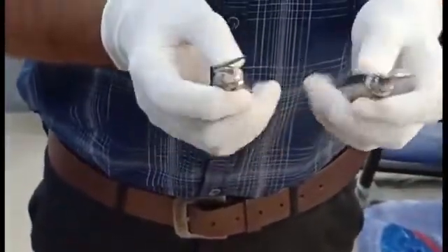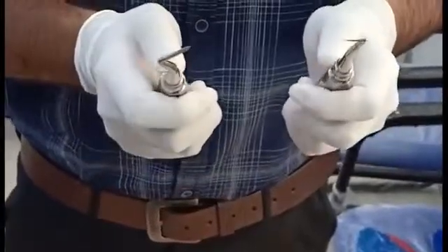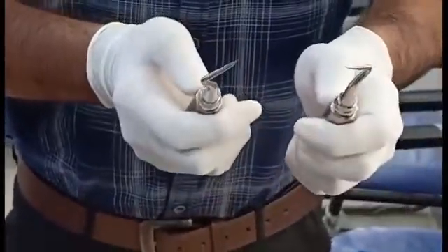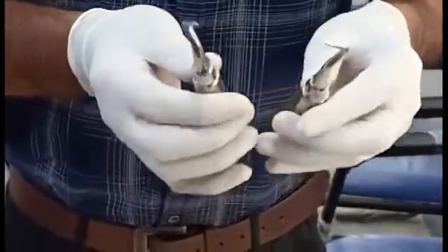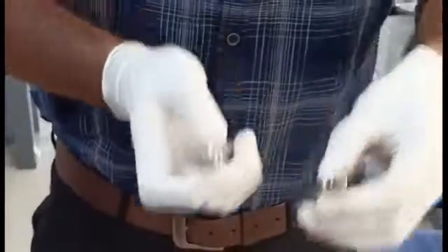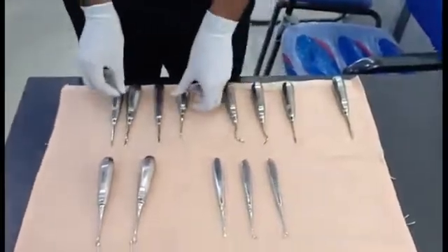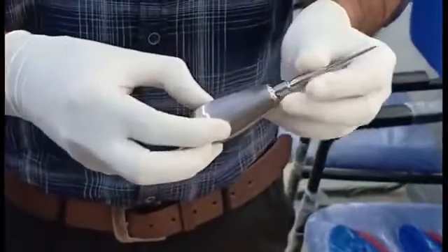This is a different one — a curved apex elevator. We have a pair of instruments for the right and left, used for the mesial and distal side. This curved instrument is used to retrieve root tips mainly from maxillary or mandibular molar root fragments. It comes in a pair and also applies the wedge principle.